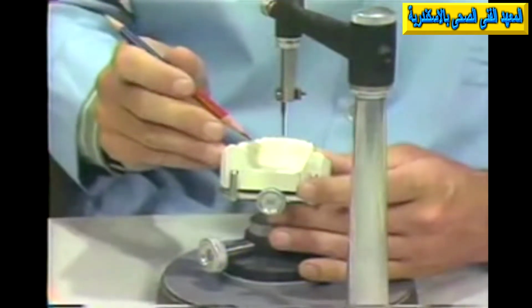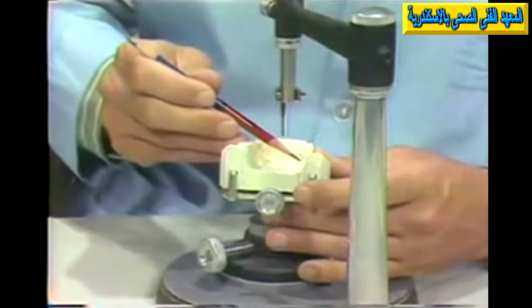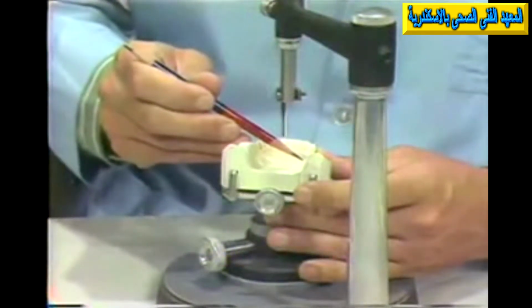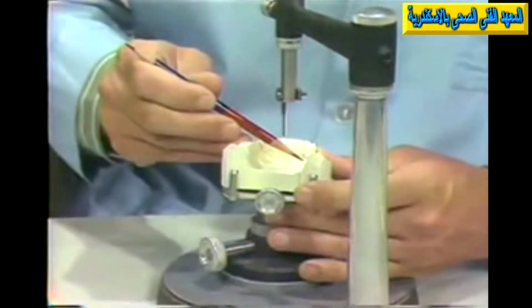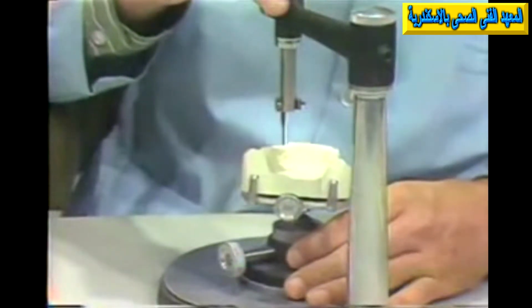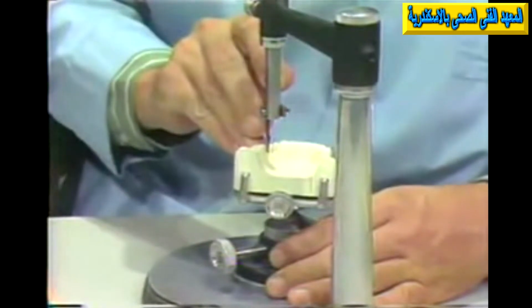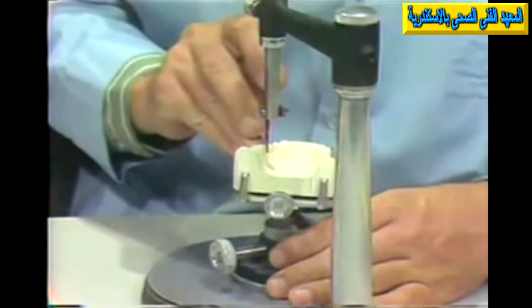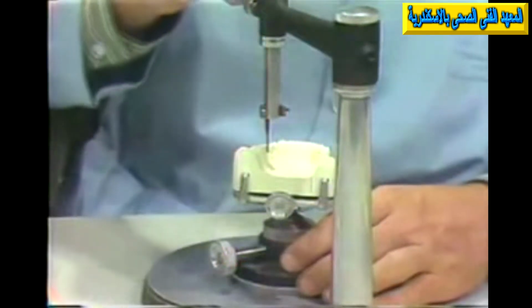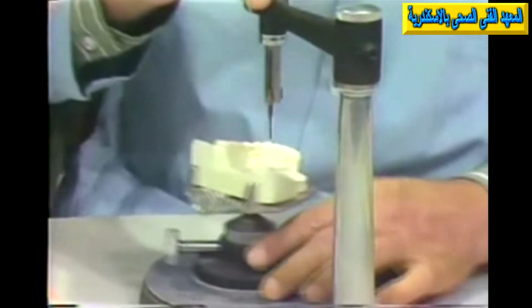Now, we may very well want to, for instance, institute some surgery procedures. Perhaps in a mandibular torus, we might want to schedule this patient for surgery to have a certain hard or soft tissue interference removed. We may want to do a little minor tooth alteration. Let's pretend that this tooth here has a little slight bulge here which is unfavorable. We may be able to do a little disking or grinding in this area to make it a more favorable plane. Or we may want to completely change certain crown shapes by building wax patterns or crowns.